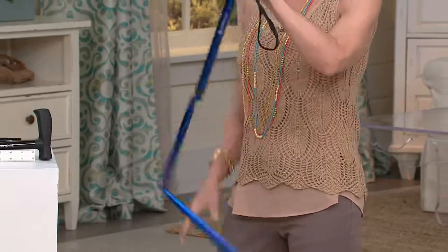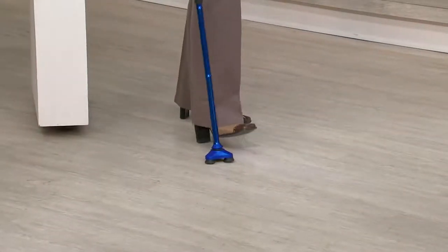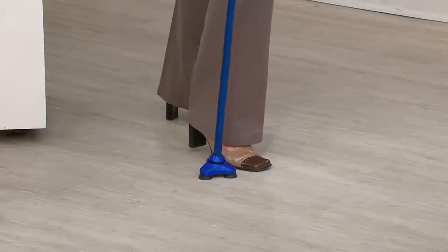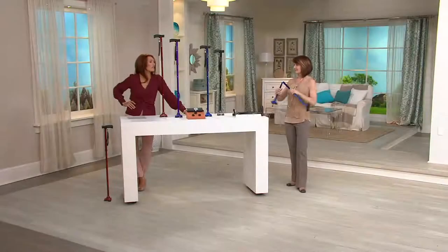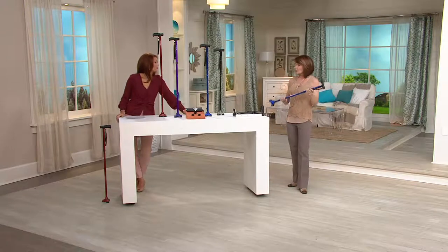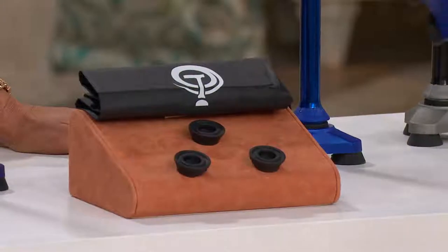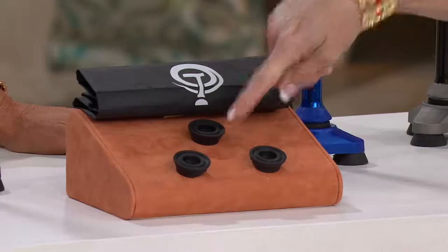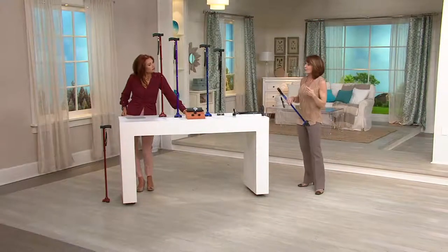Your legs may not be working like you want, or you may need a little extra help. My mom had knee surgery, and she'll be the first to tell you she is not old — she'd definitely want one with a lot of color. This is approaching the idea of a cane totally differently. I want people to look at this because this is the actual width and stability that you get with the HurryCane. That is the actual base, and the stability varies significantly from a single-prong cane.